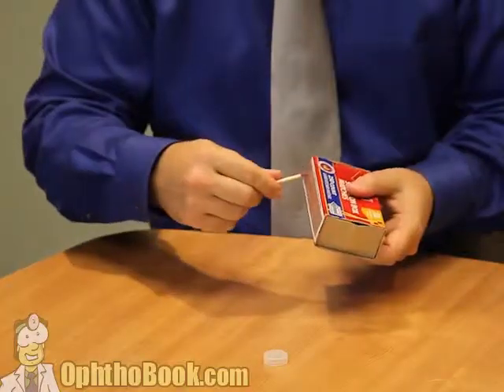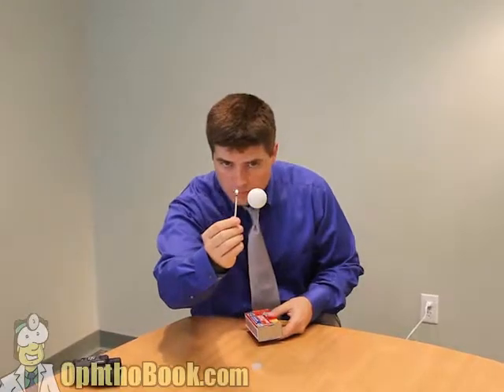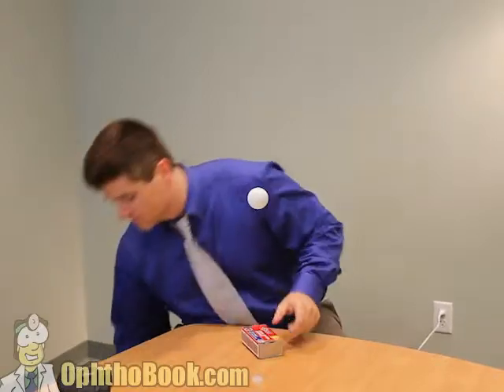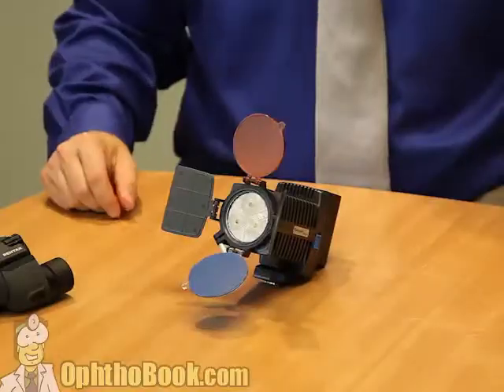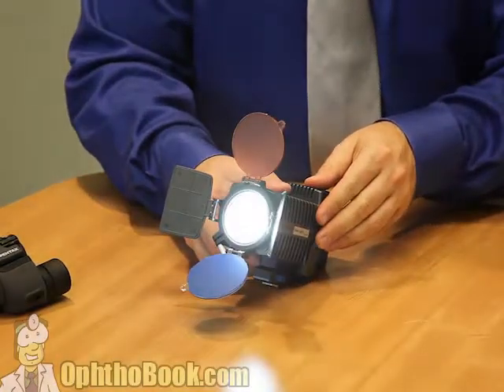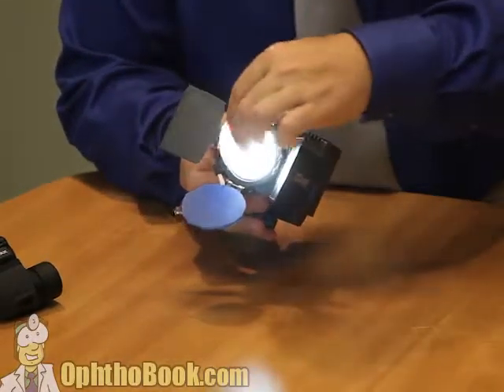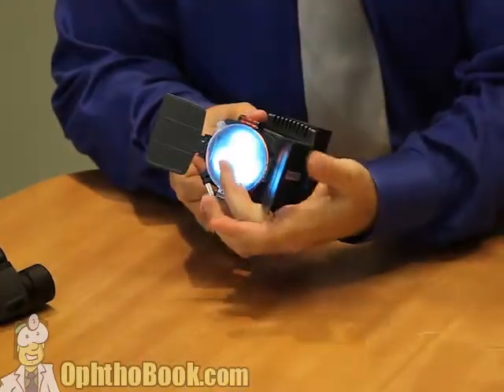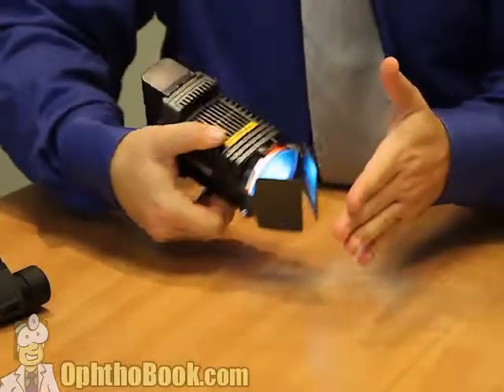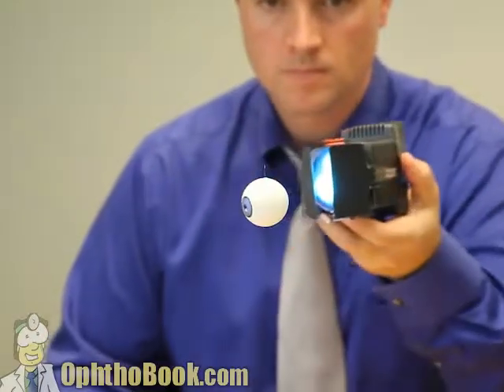Now we need a light source. Early microscopes used sunlight or even a candle flame, but it's just not enough light, and the eye is sensitive to flame. With the invention of electricity and the light bulb, we improved our design. But what if we improve our light further — put it in housing so it's very bright, focus it using a lens in the front, add filters to look at different structures, and add barn doors to create a slit of light? Now we have an excellent light source.